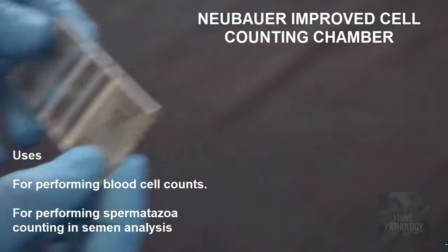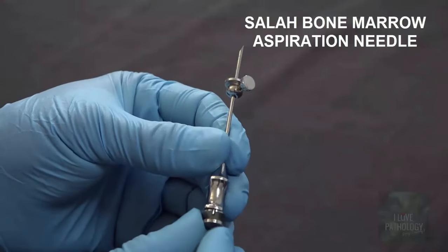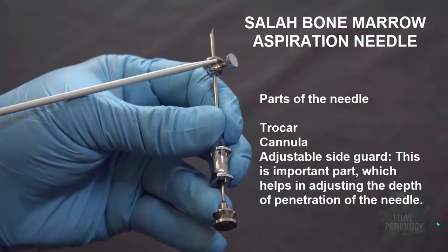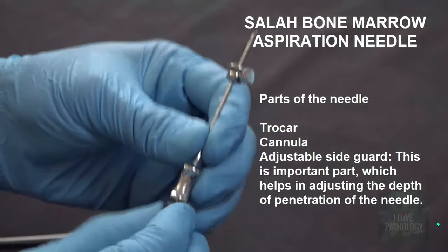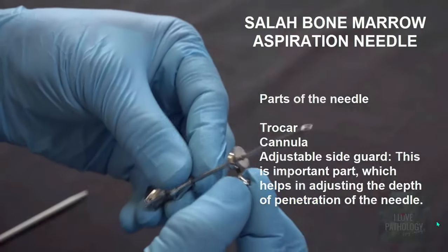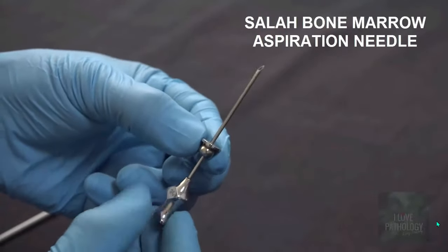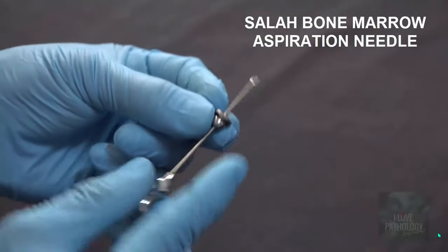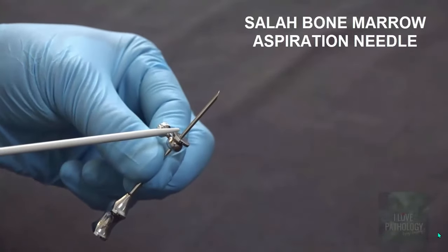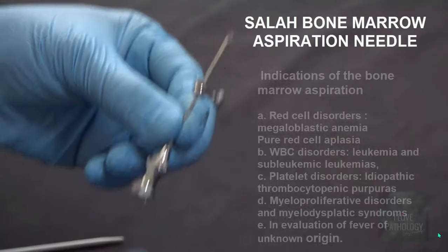This is Salah's bone marrow aspiration needle. It has three parts: the trocar, the cannula, and an adjustable side guard for adjusting the depth of penetration. It is very important to note that this side guard is adjustable — you can adjust the depth. For example, during bone marrow aspiration in the manubrium sternum, you can tighten the screw to control exactly how deep you enter, preventing damage to underlying structures, particularly major blood vessels and the heart beneath the sternum.